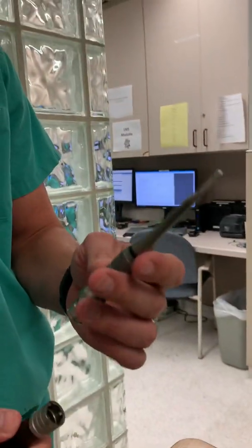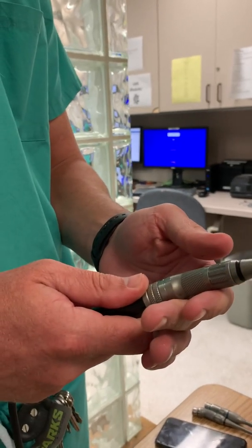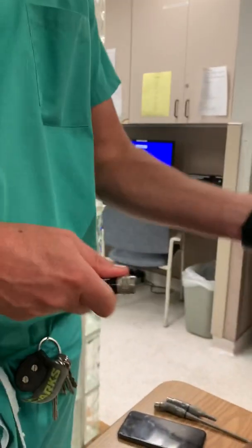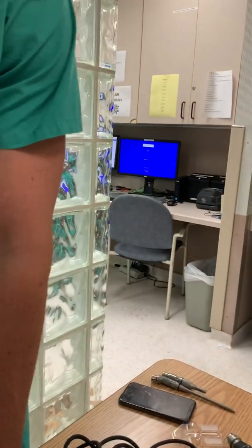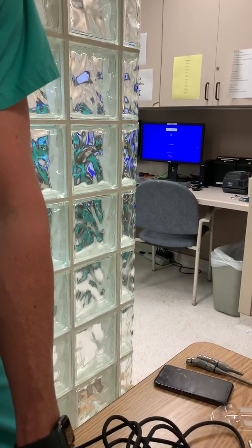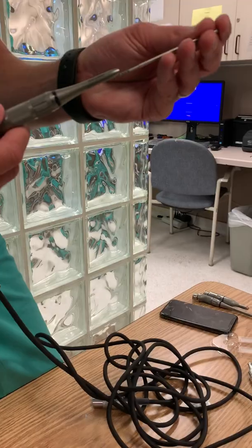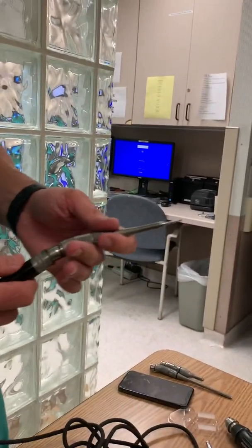This can be preloaded with your matchstick — it's got the rivets on there. Can you load all of them like that? Put the bits in there first before you put the headpiece on? No — this doesn't lock like that. Remember, these rivets go with this one and they lock in a different way. So the only one you can preload like that is the blue and the red one.